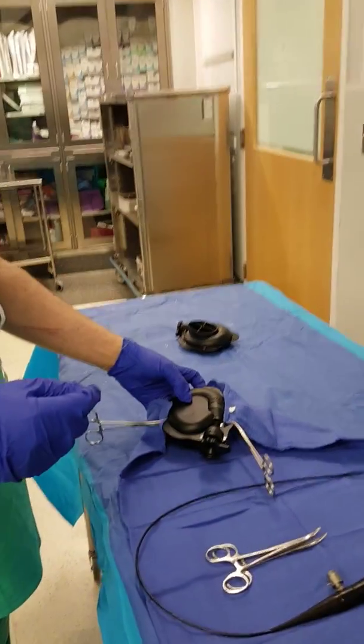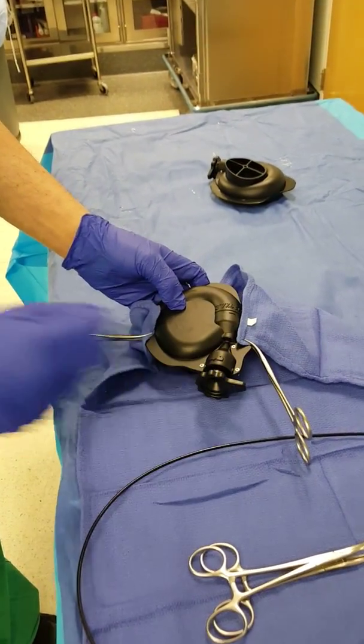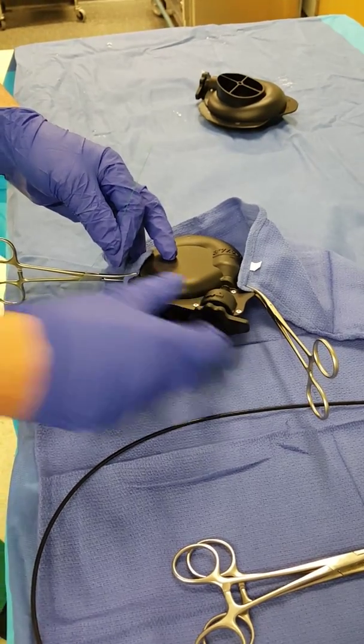The way to assure that this is placed safely is to twist the latch clamp and make sure the latch clamp is all the way to the left. Here's the rotation to the right, and here's the latch clamp rotating to the left.